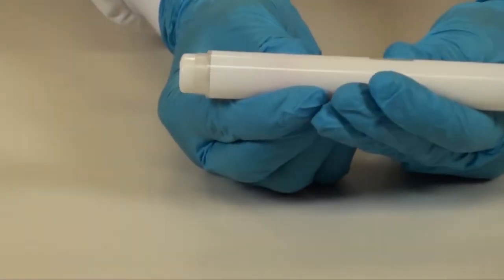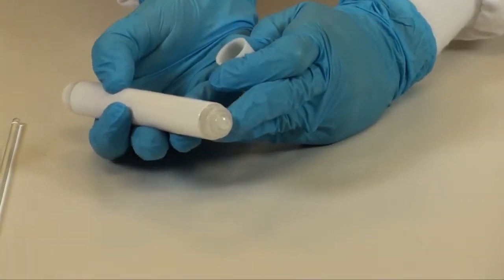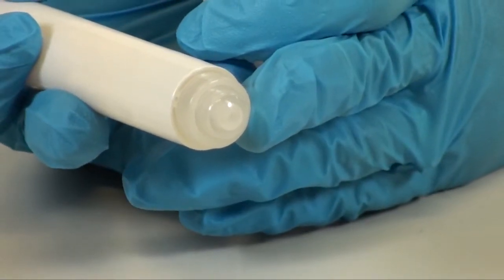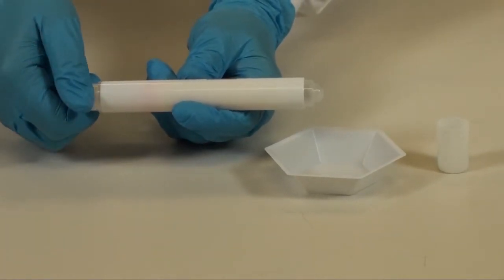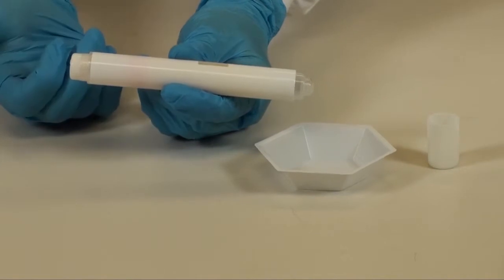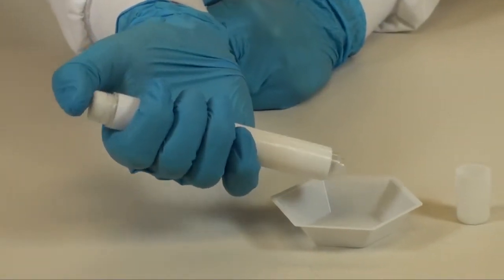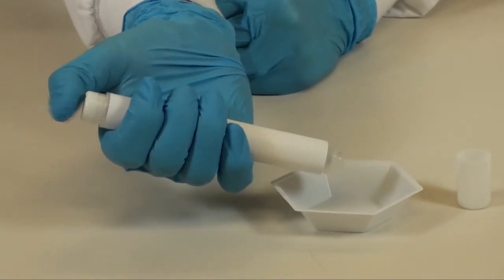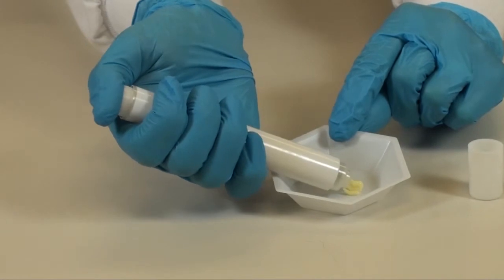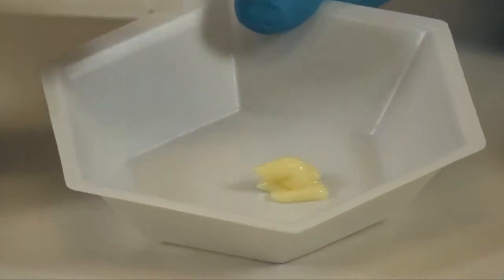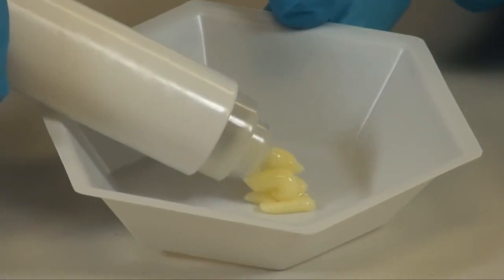Counterclockwise, one way will be open and clockwise will be closed. And then you can go ahead and dispense the gel from the top of the AccuPen. Remember, if you turn the button counterclockwise, that will go ahead and open for the gel to be dispensed. And to dispense the gel, you click it just like a pen. And you want to go ahead and prime this device to make sure there's no air in those first few squirts coming out. So go ahead and dispense some. And when you get one or two of the squirts that have no air in them, you can quit priming the device.